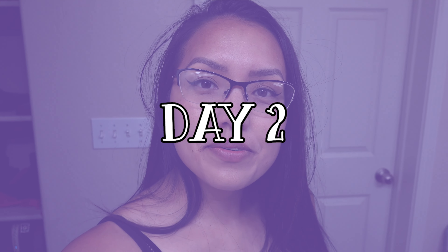It is day two now. This morning I woke up and I didn't leak at all last night, which is really good. I also forgot to mention that yesterday when the Flex Disc leaked, it wasn't a huge leak. This morning I put a new disc in and I went shopping and was probably out for about three hours. After all of that grocery shopping I came home and I didn't leak at all, which is pretty crazy. There were a couple of times after I came home while putting groceries away that I kind of felt like I was going to leak, but I went to the bathroom and there was no blood at all.